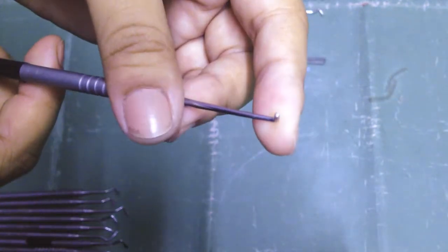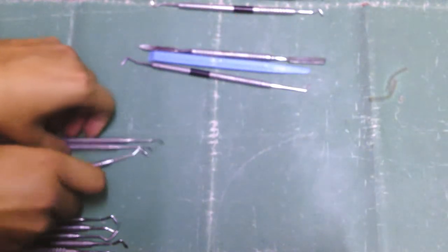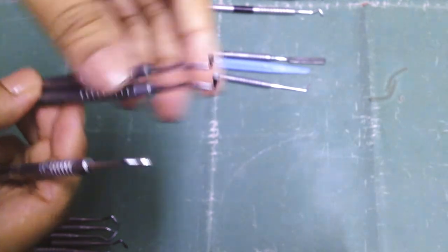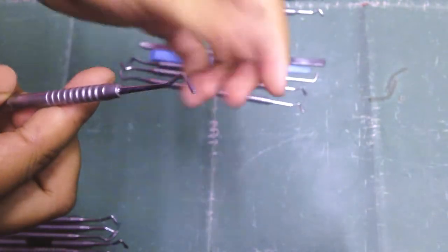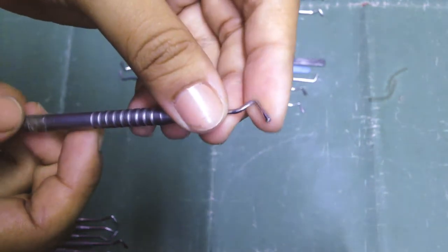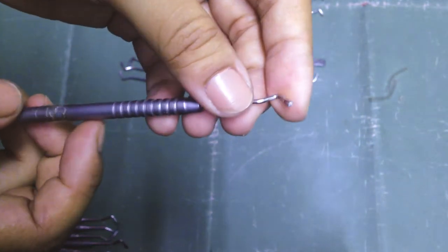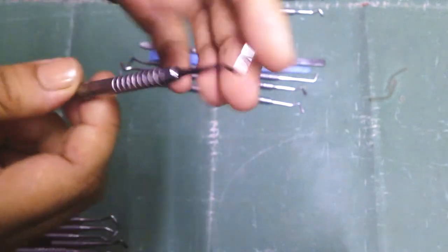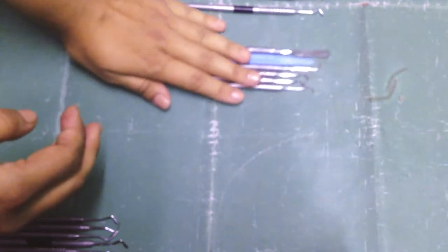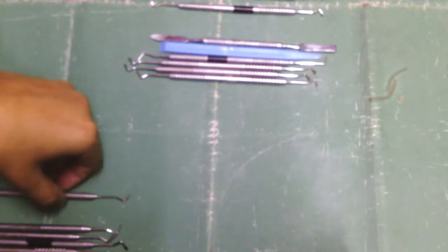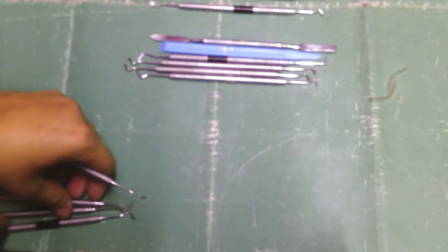Then we have some condensers. These are parallelogram condensers. This is a cylindrical condenser. These are serrated. There are also non-serrated varieties available. Then we have some carvers.